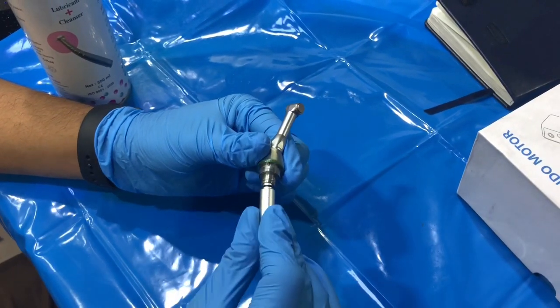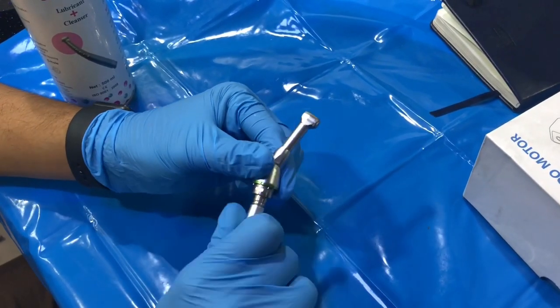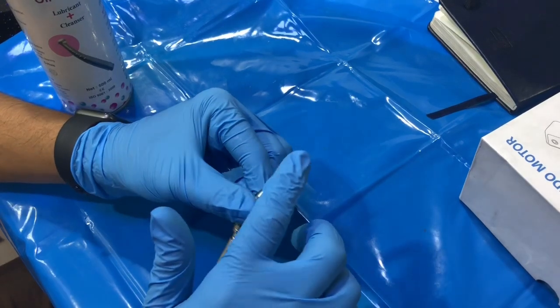This is how you fit it, and when you turn it, the cartridge moves.